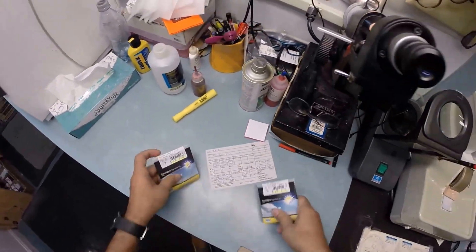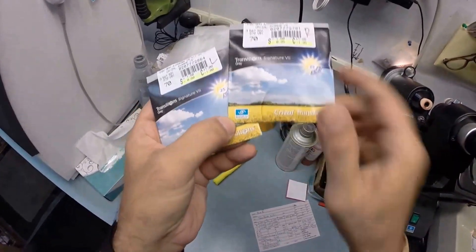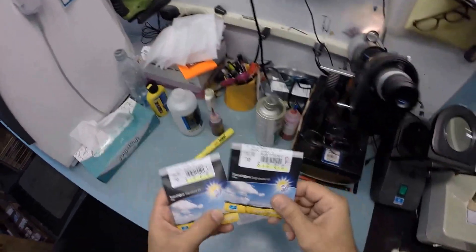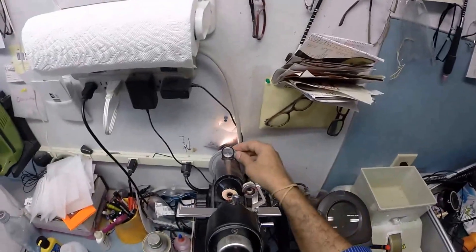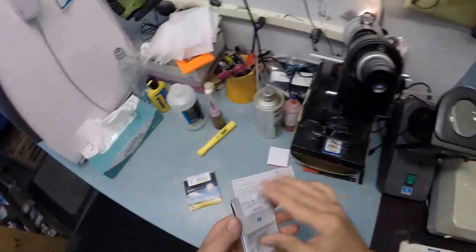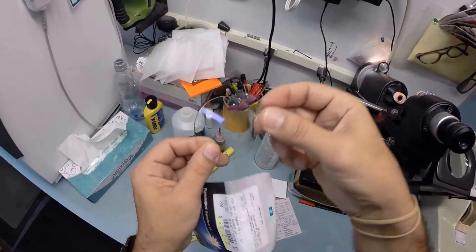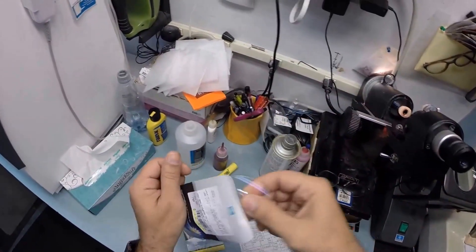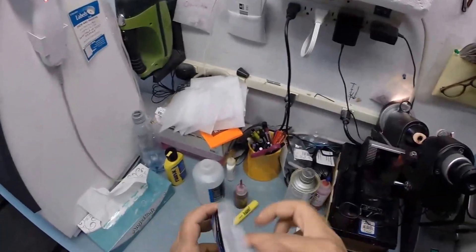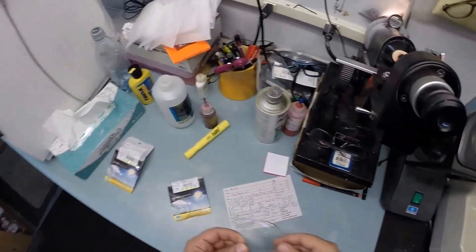And of course you're going to get the manufacturer's original packaging for these to make sure that you're getting the original authentic Essilor brand Transition Signature 7 gray lenses with Crizal Avance. So I'm going to spin the axis wheel to 99, which I've done. Put the power drum on minus a quarter. Take your lens out of the protective packet. It comes with a little laminate across the front of the lens to protect it while it is being shipped, and of course you're going to get all the manufacturer's original packaging.